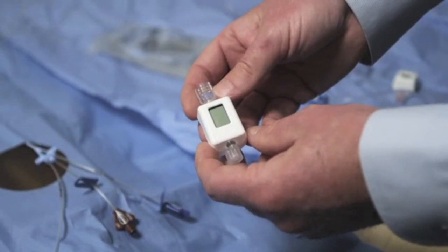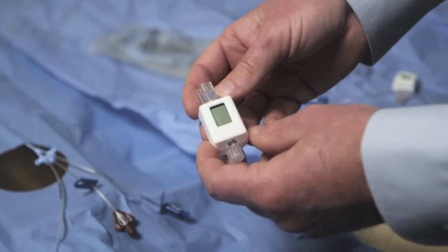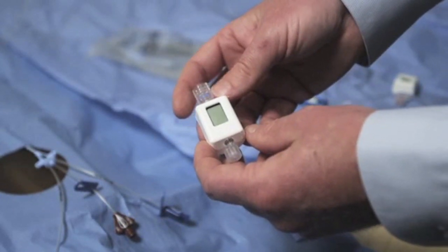This is a tutorial for the use of the Compass vascular access lock for central venous pressure monitoring via a central line.